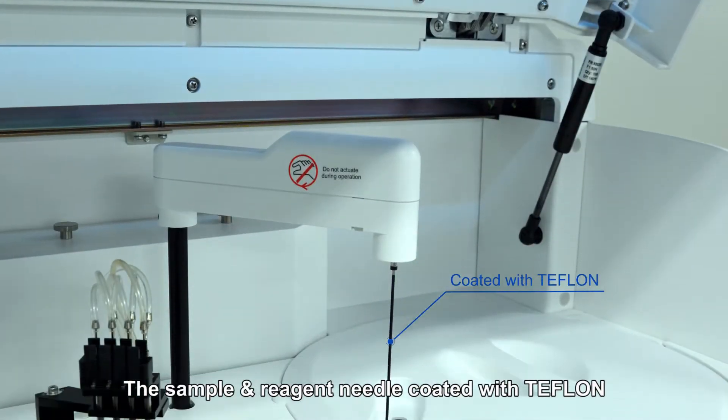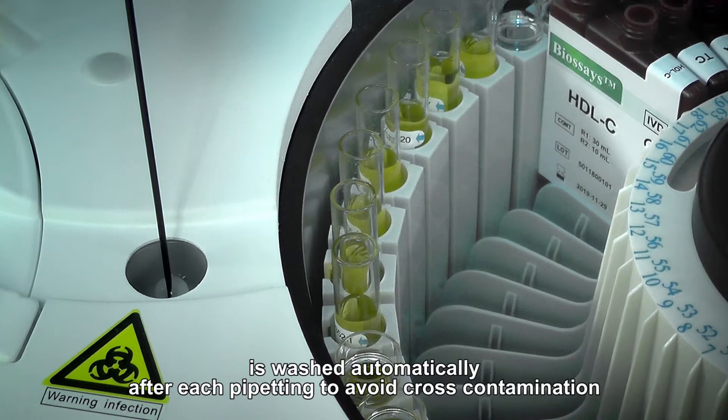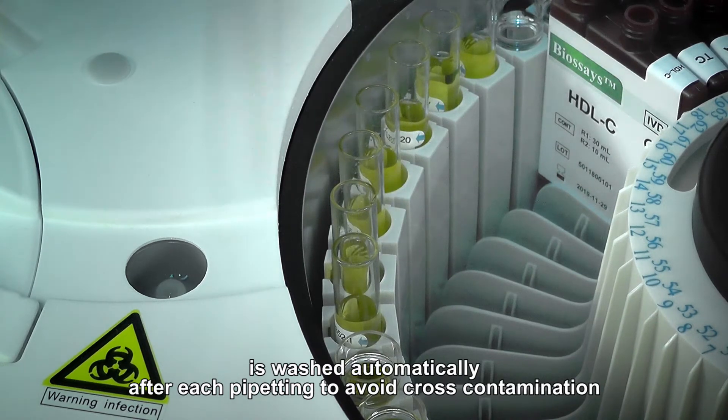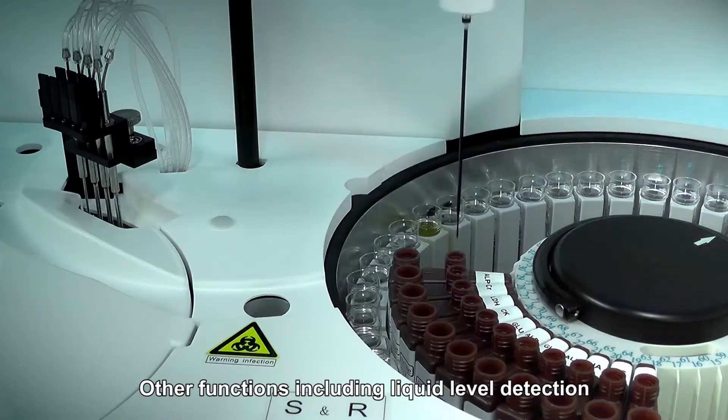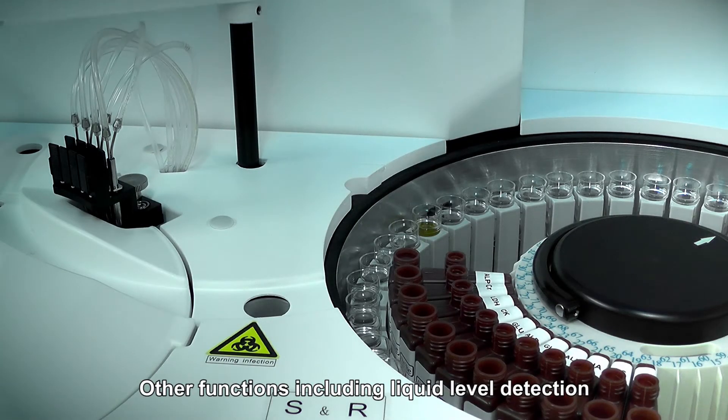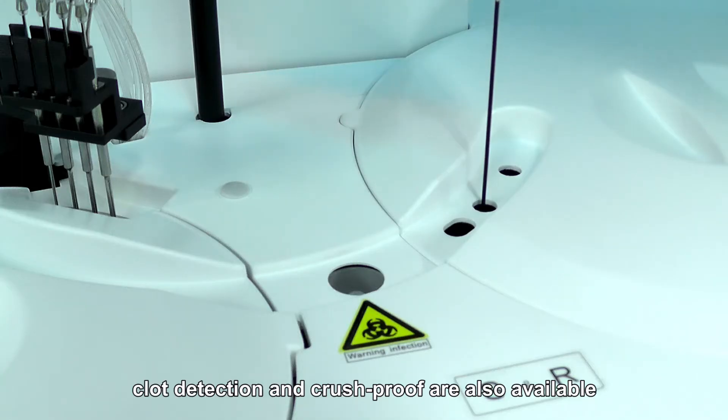The sample and reagent needle coated with Teflon is washed automatically after each pipetting to avoid cross-contamination. Other functions including liquid level detection, clot detection and crash-proof are also available.